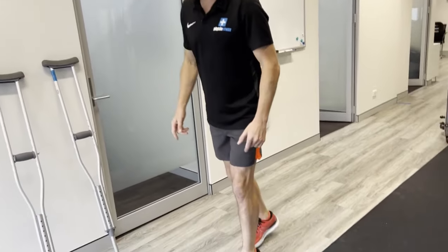When your injured leg is on the same side as the handrail it's easier; if it's on the opposite side, it's harder to weight-bear as you step up. Make sure you're close to the support so you can stay directly over that leg as you come through — not shifting away from it. This applies with crutches too: get your body committing to that side to weight-bear more. Every step you take, thousands of them, you're confirming to your brain it's okay to put weight through it, and you get better and better, shifting more and more weight until it's 100% and there's no limp.